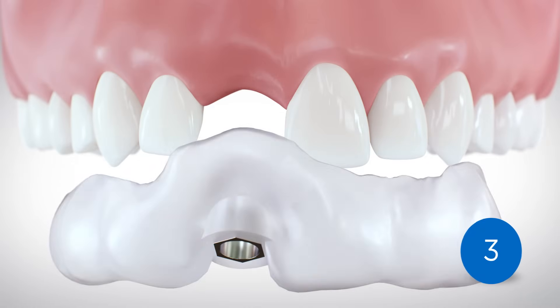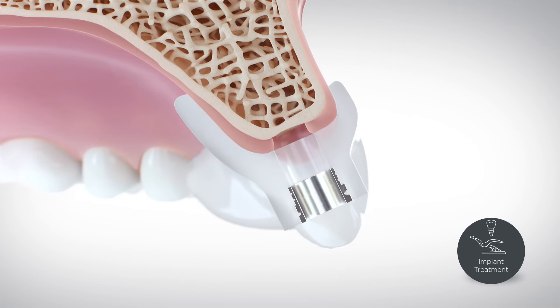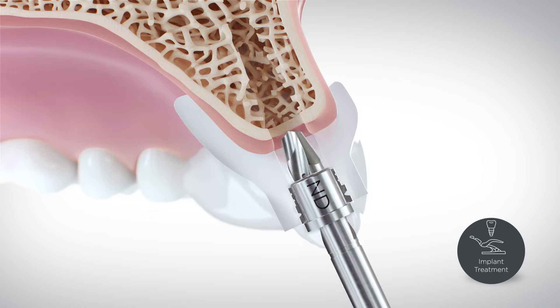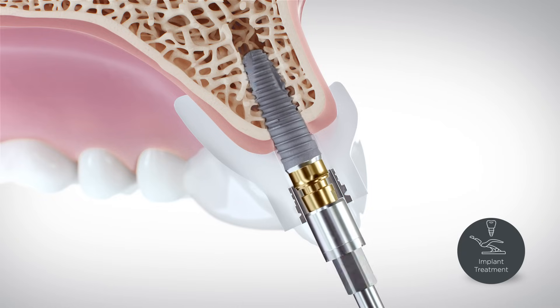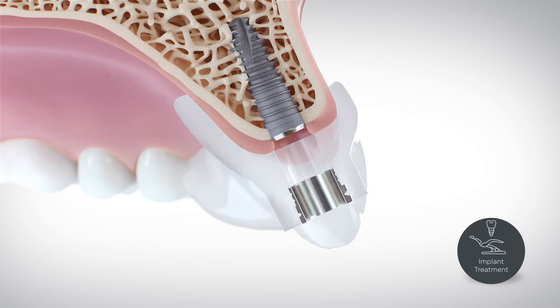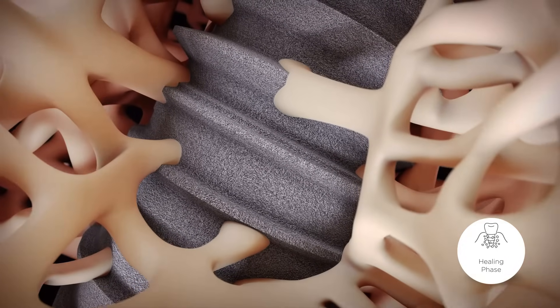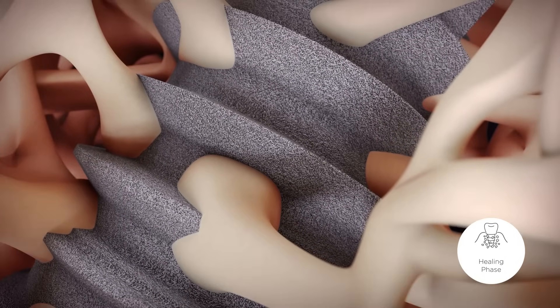During step three, the surgical guide is attached to your teeth. The bone is prepared for the implant, and the implant is inserted in position exactly as planned. A temporary abutment and a temporary crown are put in place. During the healing phase, the implant is completely integrated with the bone tissue. Innovative technology and a growth-activating surface provide for secure and quick healing.